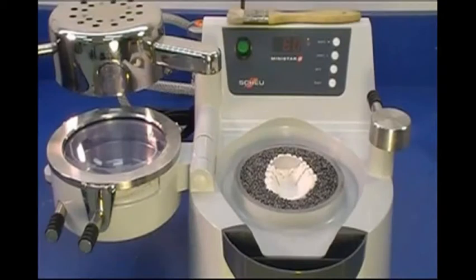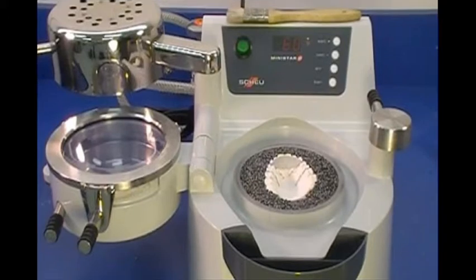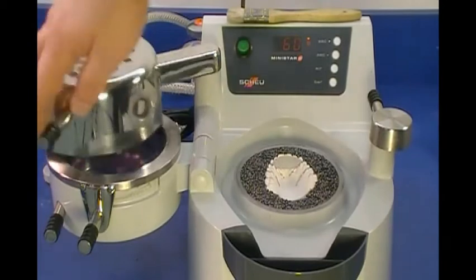Select a 2 mm BioCryl disc. A variety of colors and pattern designs are available. Clamp the BioCryl disc onto the chamber. Identify the material's heating time or BioStar code and enter it into the machine. Swing the lamp over the clamped material to start the heating cycle.